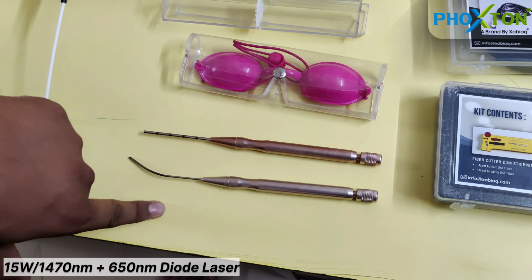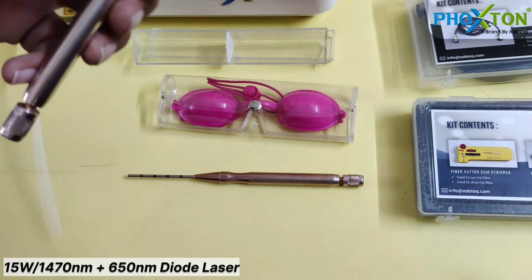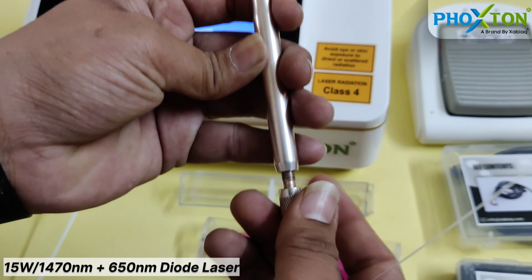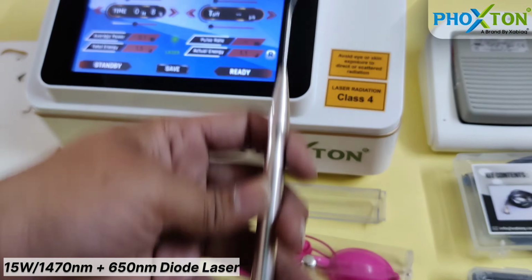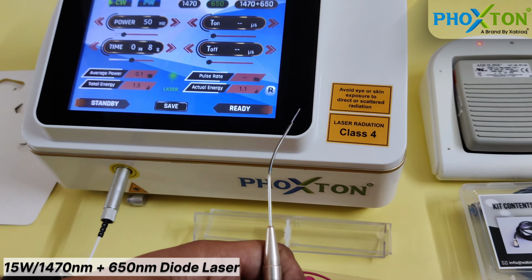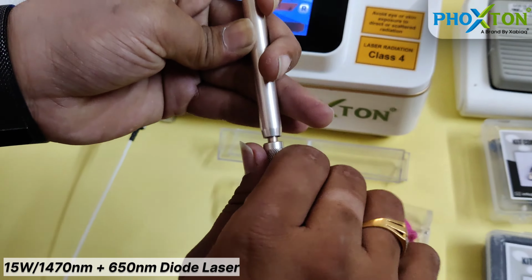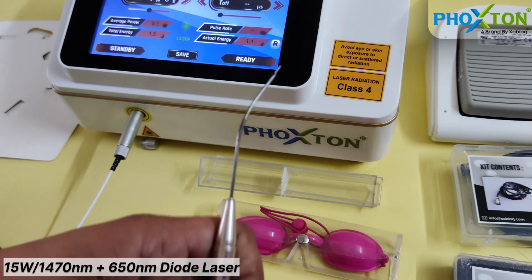One is straight and one is curved. Now I will show you how this curved handpiece is kept. Now this is the back side of the handpiece. This is a screw, a rotating screw. You can loosen the screw, don't open it, keep it like this. You can insert the fiber from the back side. We have inserted the fiber. You can see there will be a tip coming out of the fiber. Now the tip has come outside. Keep 4 to 5 mm of fiber outside and then tighten this screw so that the fiber will not be too loose and not too tight.